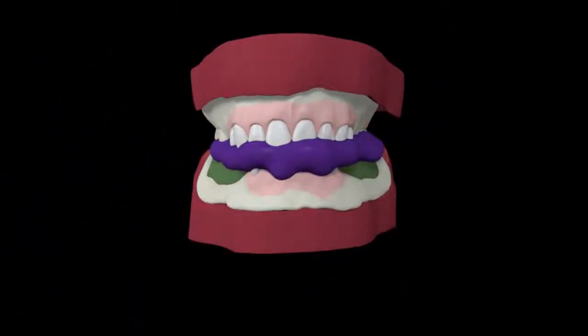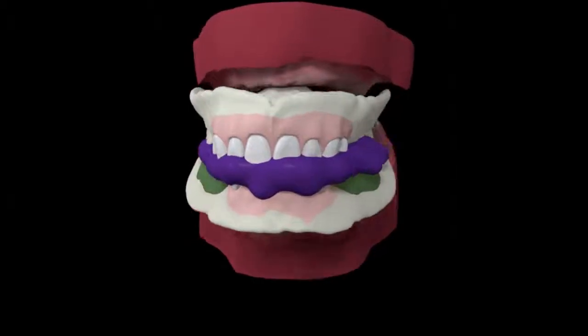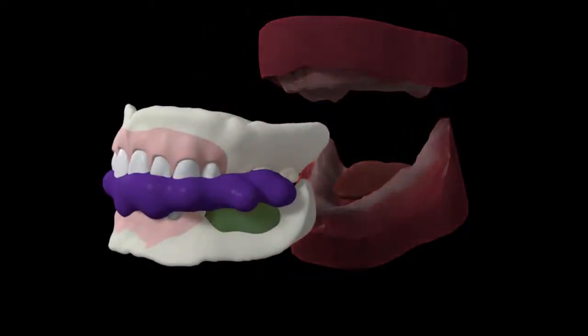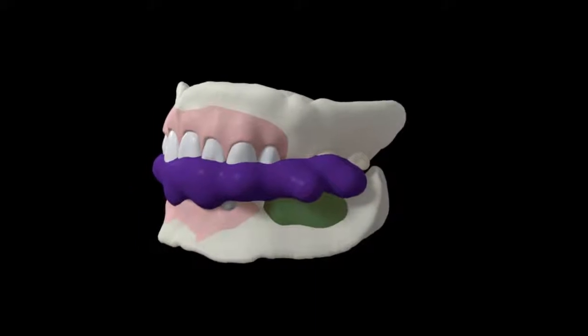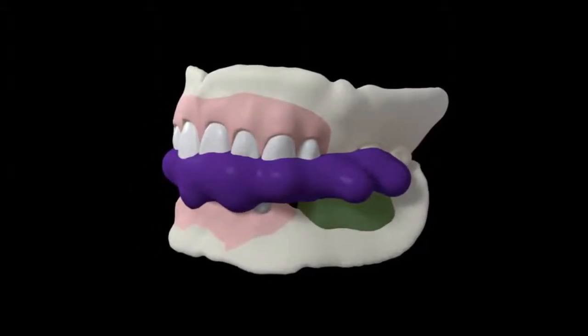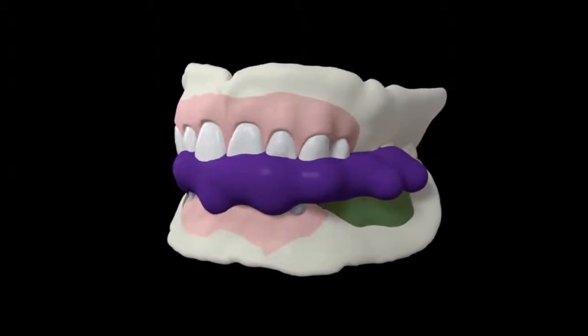The easy guides can now be sent to the lab for scanning. The dentures are designed with the Avident proprietary tooth arrangement software and once the tooth setup has been approved, the dentures are milled.